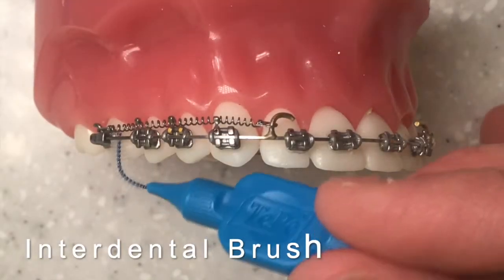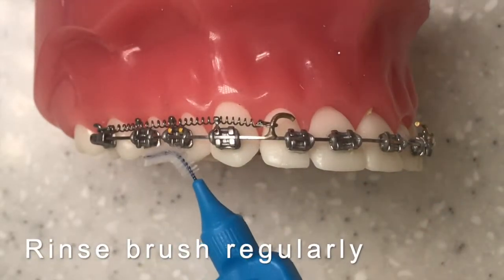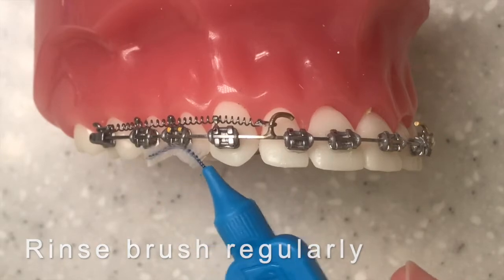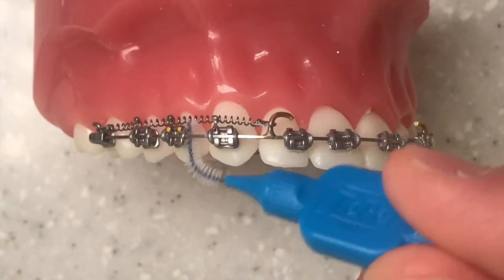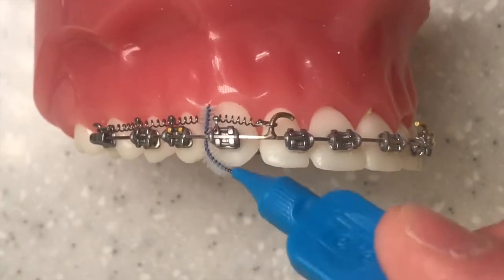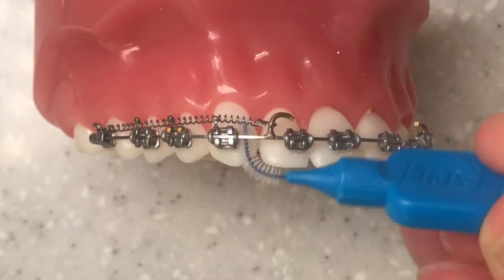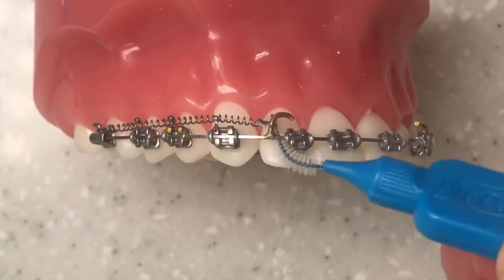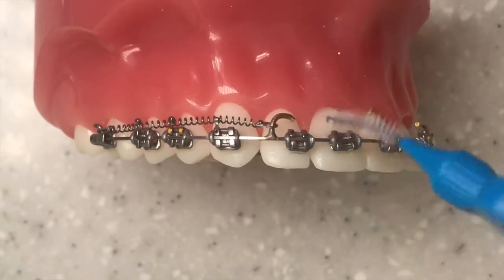You can also use these little interdental brushes that you can get from the supermarkets and your normal dentist to do exactly the same thing. That's again going underneath your brackets, underneath the wire, just to remove all the little bits and pieces that can build up around the little nooks and crannies of each of your brackets. So make sure they're nice and clean, and that we don't get any damage on those tooth surfaces, working all the way around on your front teeth and the back teeth.